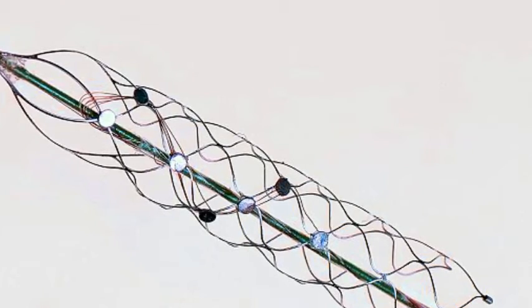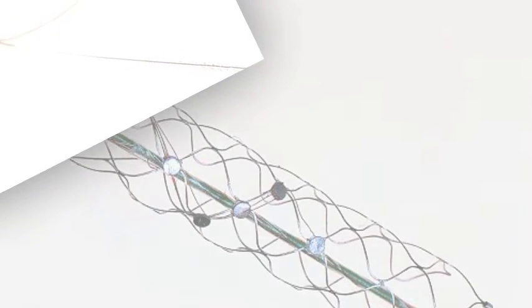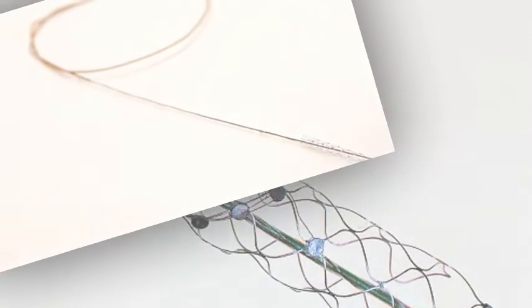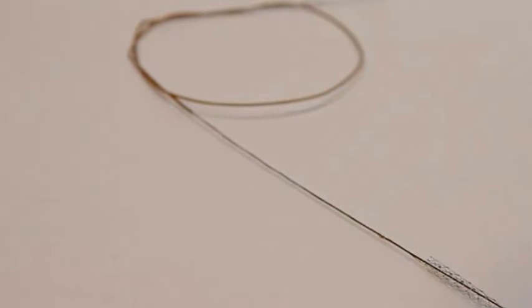The new device will be implanted in the first in-human trial at the Royal Melbourne Hospital in 2017. Results of preclinical trials, published in the journal Nature Biotechnology, show the device is capable of recording high-quality signals emitted from the brain's motor cortex without the need for open brain surgery.